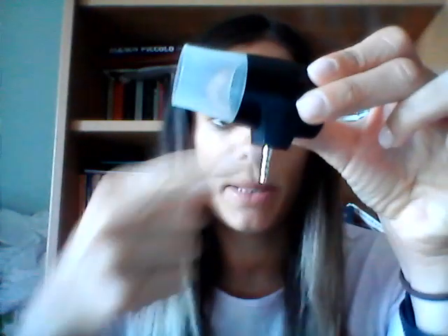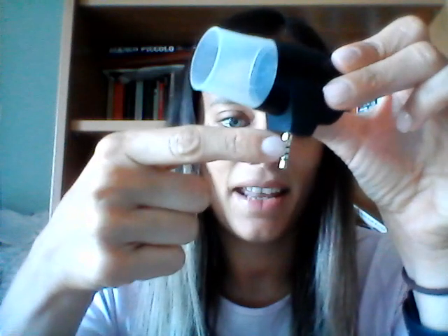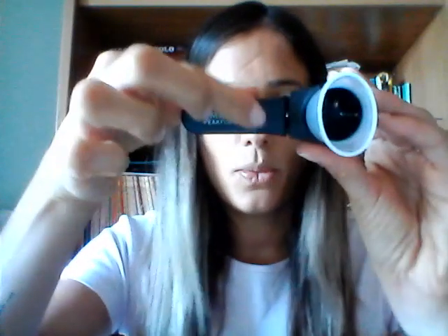The peak flow is coming with the mouthpiece. If your phone has an audio jack, you can plug the device directly to your phone, otherwise no worries because we provide the Bluetooth adapter. Once you press the button, it starts flashing and it will connect it to your phone.